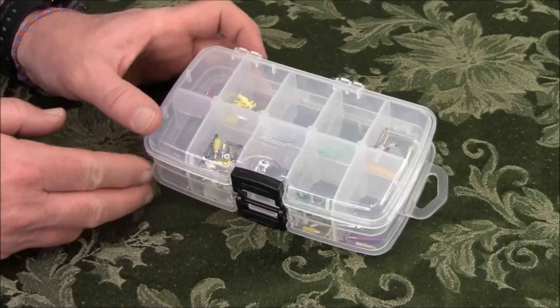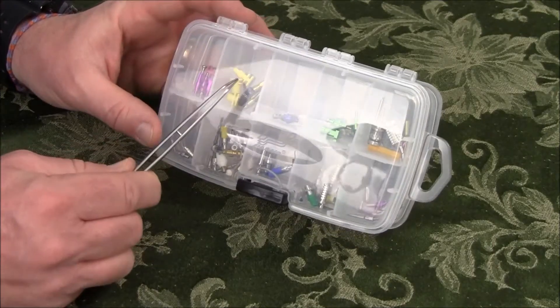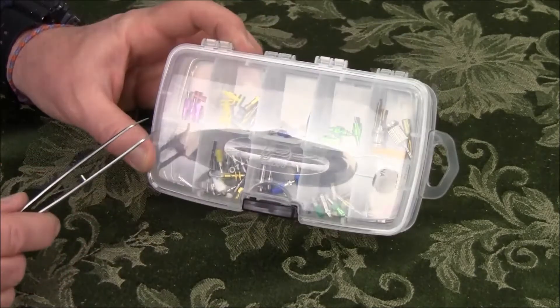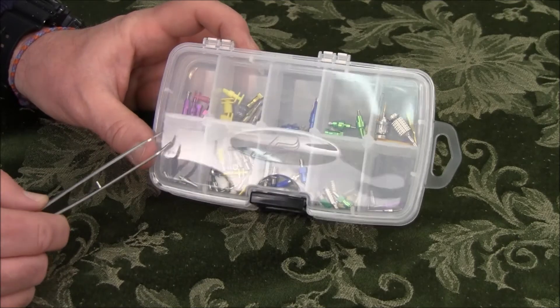This is all of mine for the Nobel system. On this side, I have narrow platform, regular platform, wide platform, and 6.0. You can see all color-coded with optional abutments and temporary abutments.